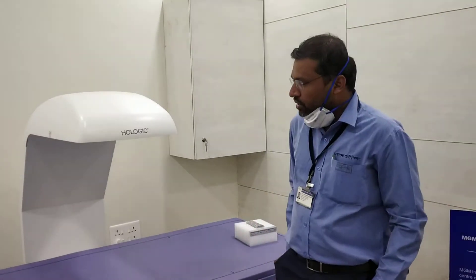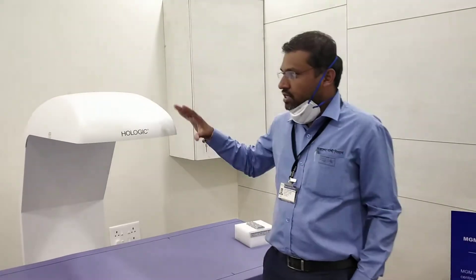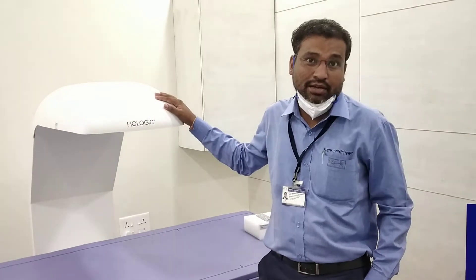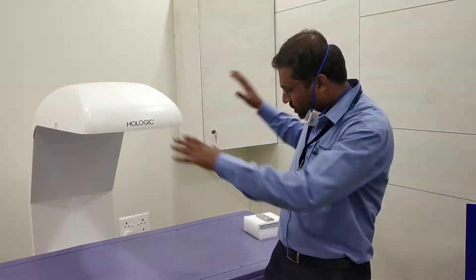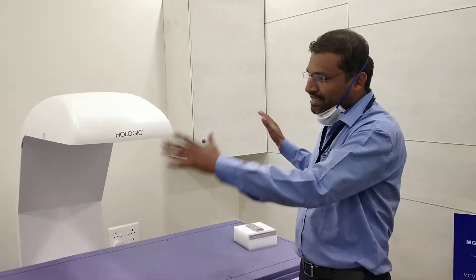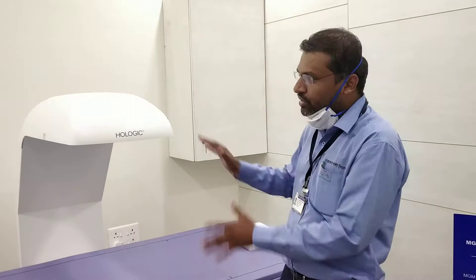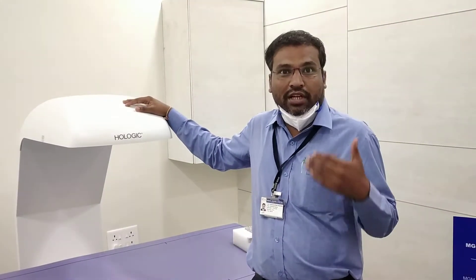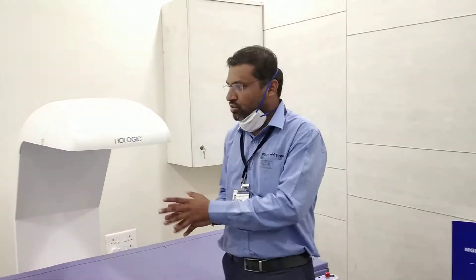Today I am going to tell you the basic operating of the DEXA scan machine. This is called a bone density meter machine, also called a DEXA scan machine. With the help of this machine we can check what are the minerals, what is the content of the bone, what is the density of bone, weakness of bone — a lot of things we can check with help of this machine.